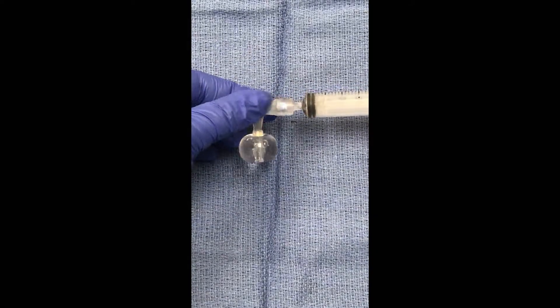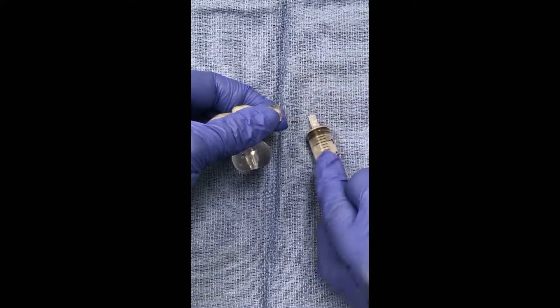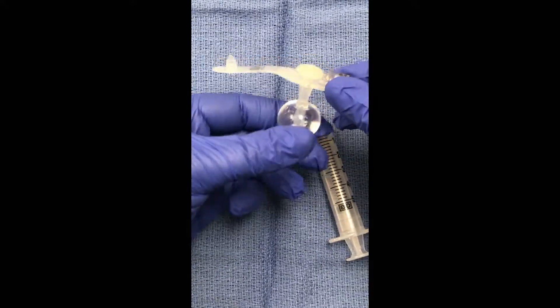The balloon is made of silicone, it's latex free and it's very soft. To check the integrity of the balloon, go ahead and squeeze.